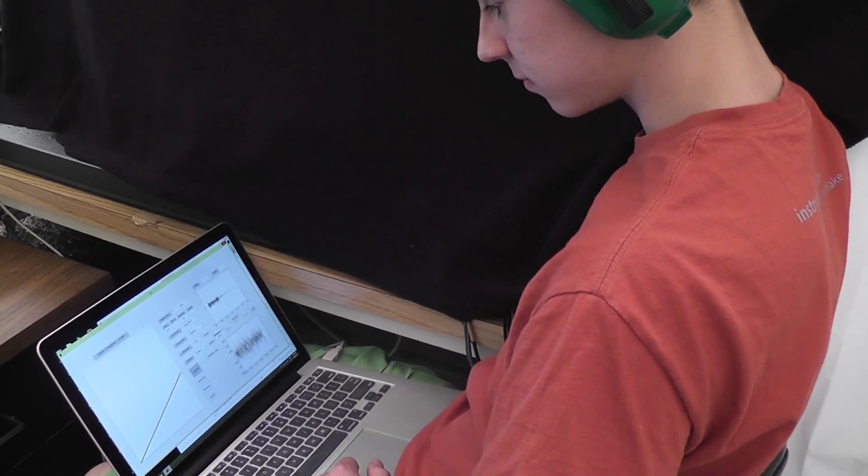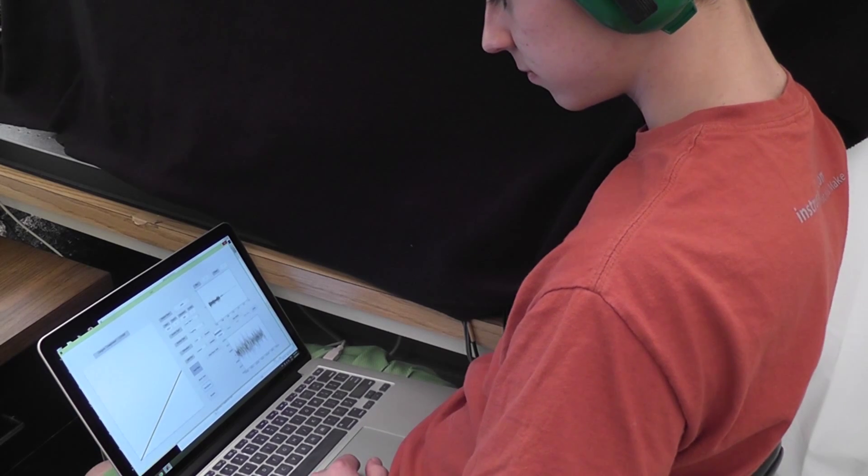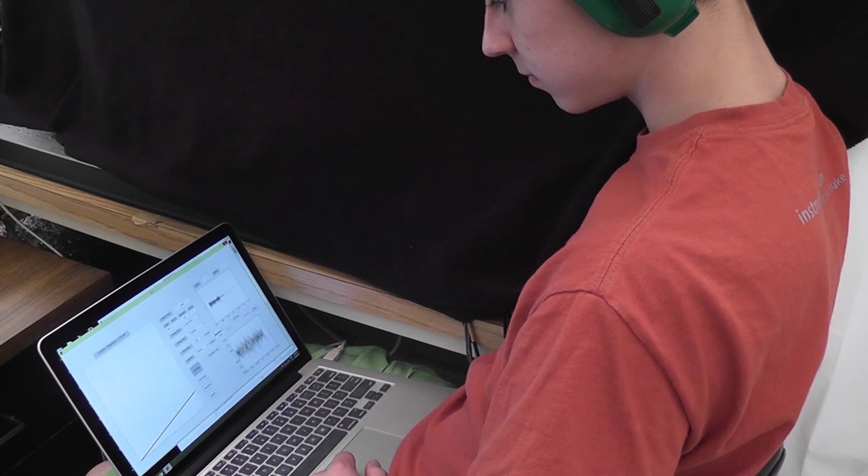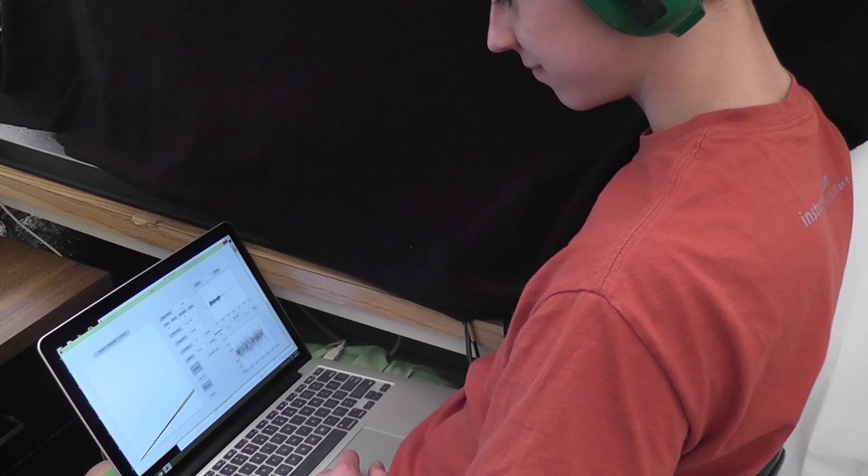During evaluation, the prosthesis and blue virtual finger are hidden from him, and he must match the red target angle based off of skin stretch feedback alone.